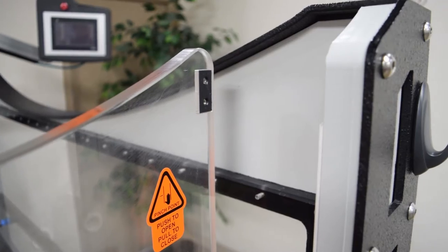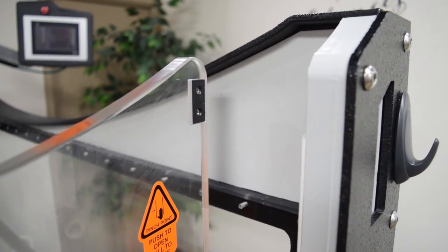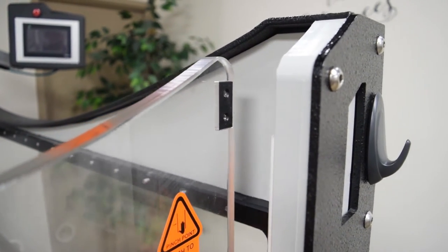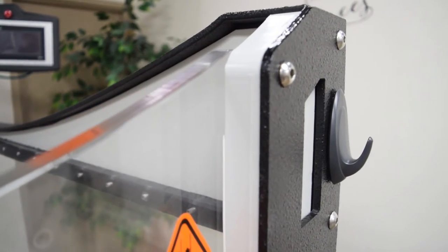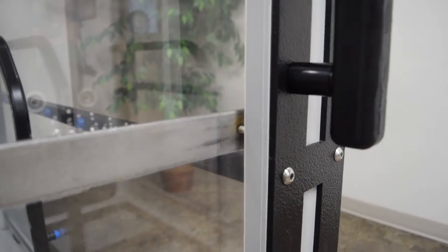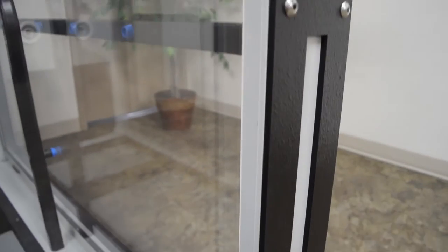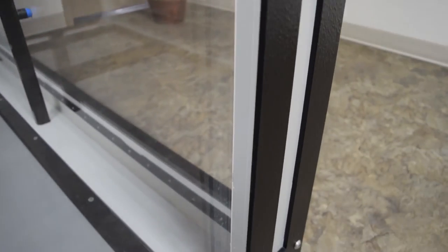The lock-tight magnet door latches at the top, middle, and bottom and will remain secure without any leaks for the entirety of your session.